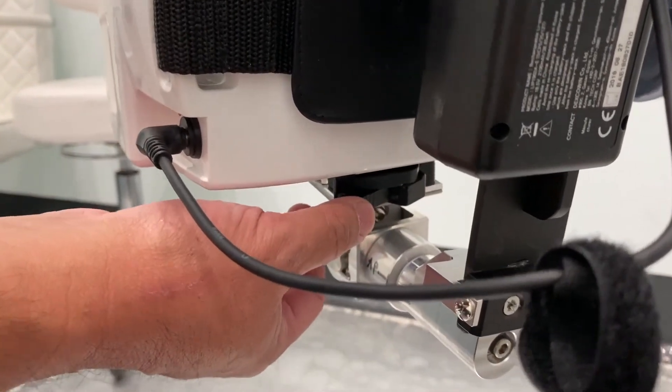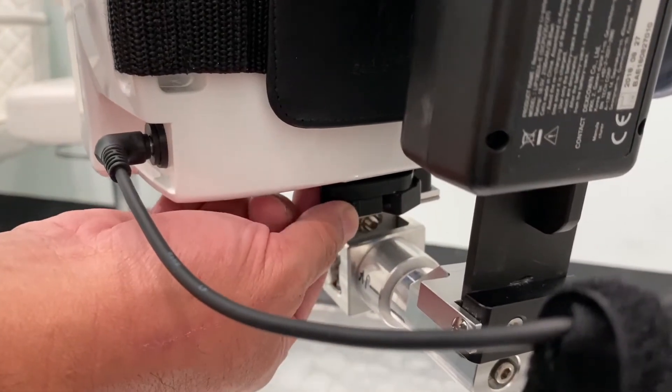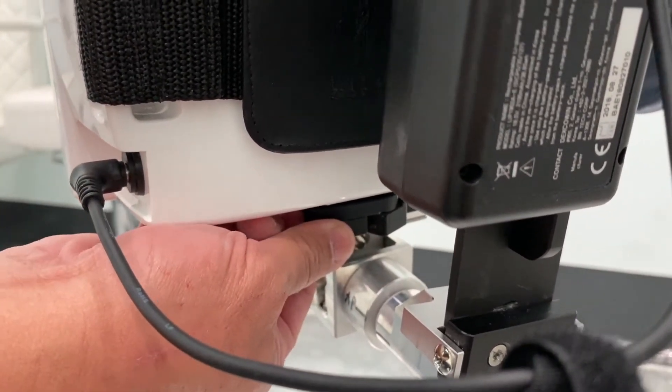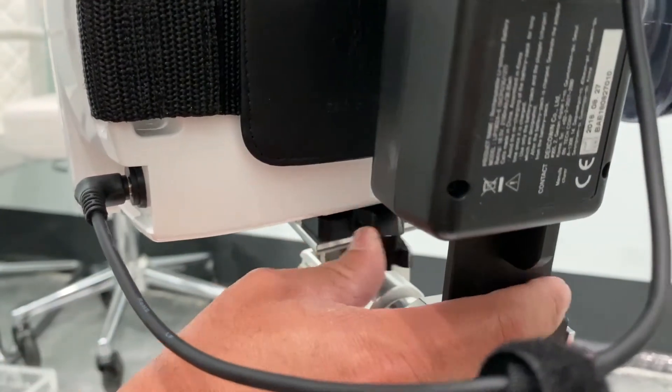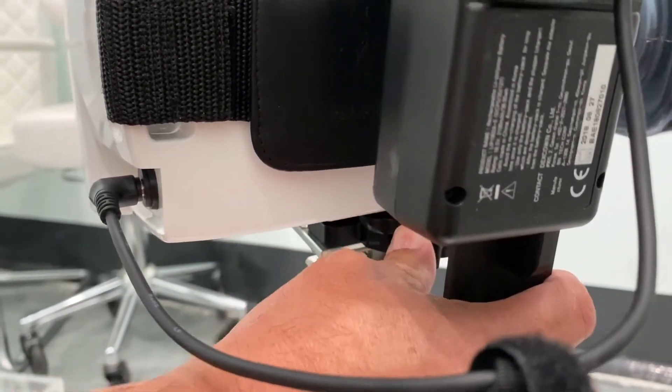There is a safety unlock lever that you need to press in and that allows you to simply move this lever 45 degrees.